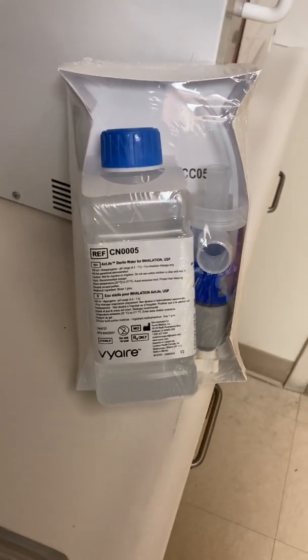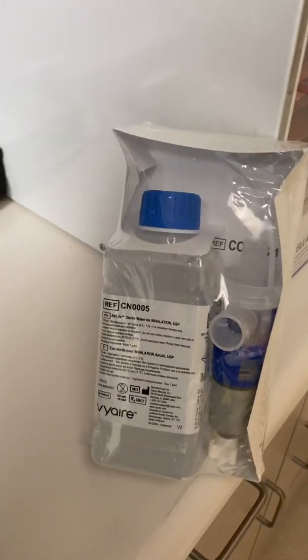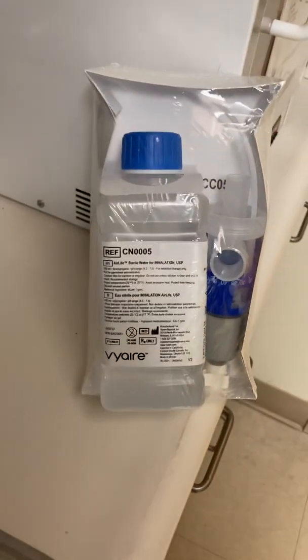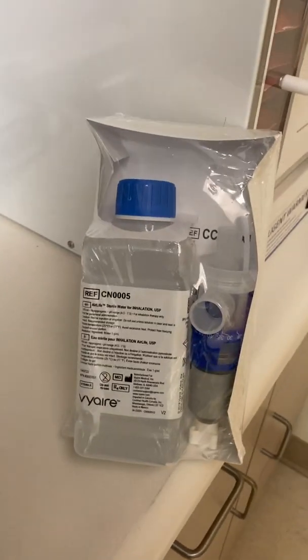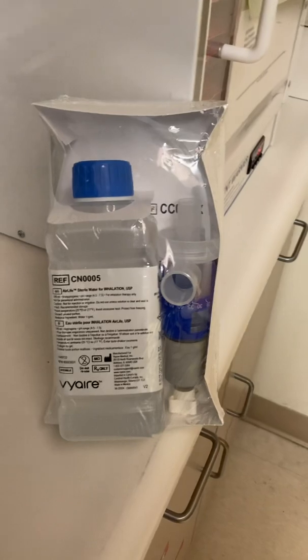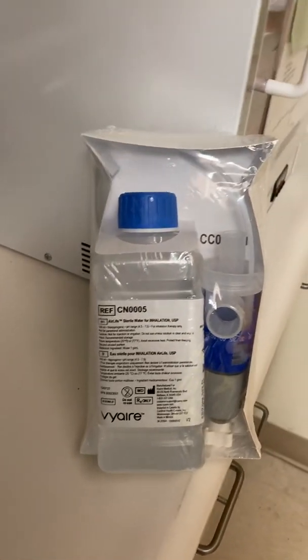Hello respiratory family. This is our aerosol therapy system. Typically aerosol therapy is provided for patients that have an artificial airway in place.